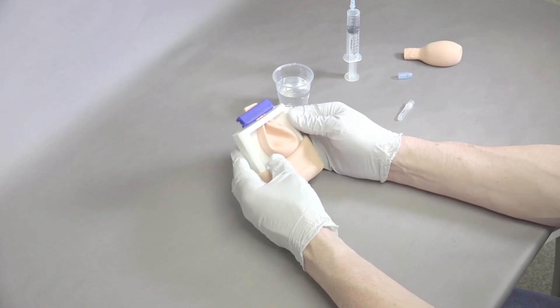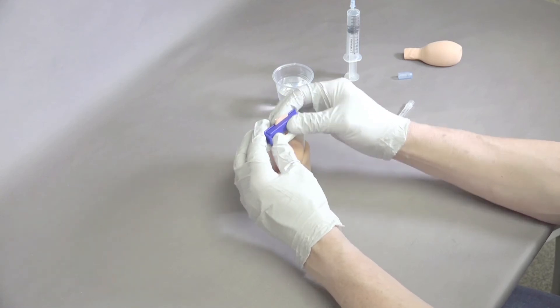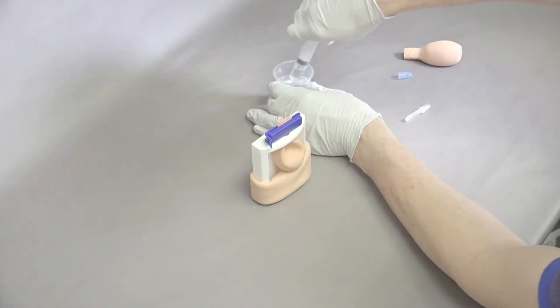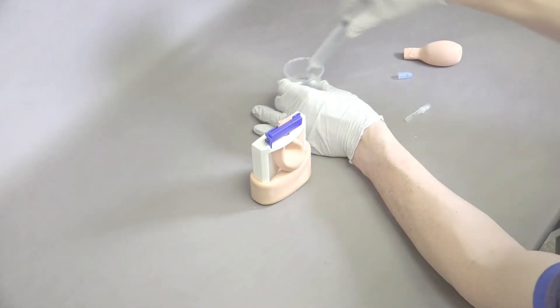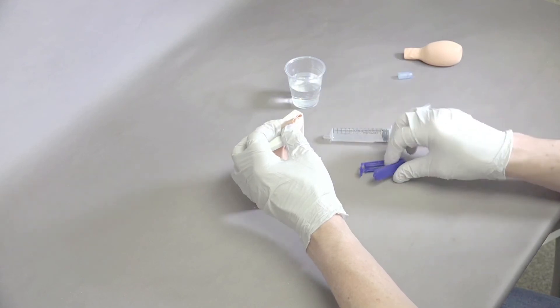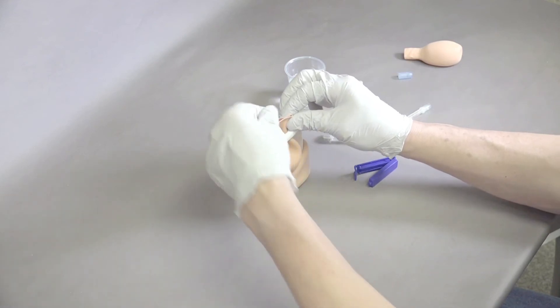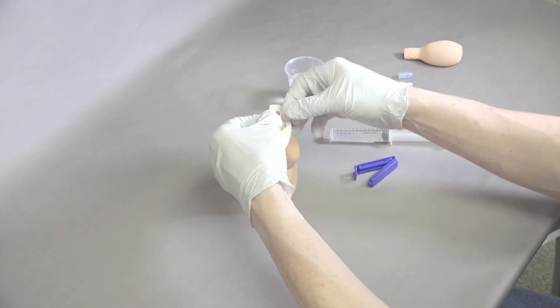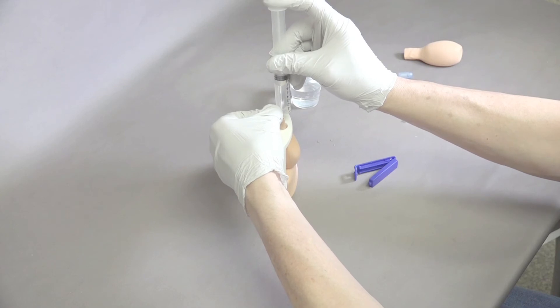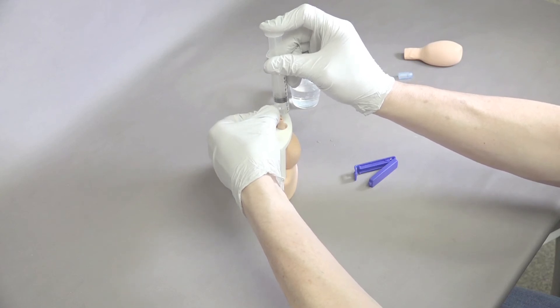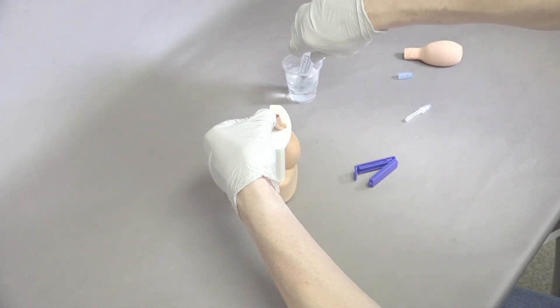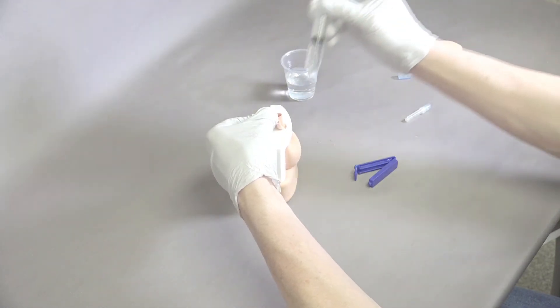It can require many sticks. When it's time to refill, take the needle off, fill the syringe again from the cup, come back, and open up the clamp at the edge of the bladder. Refill, going a little slower so it doesn't come out. This time we can fill it a little fuller to get it ready for a novice to practice with.